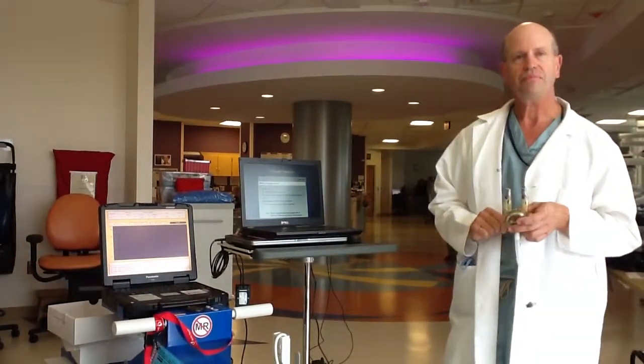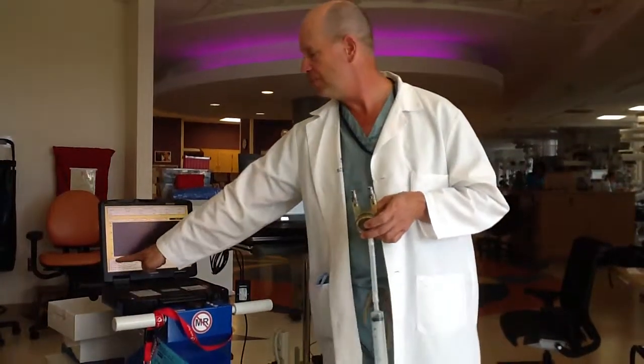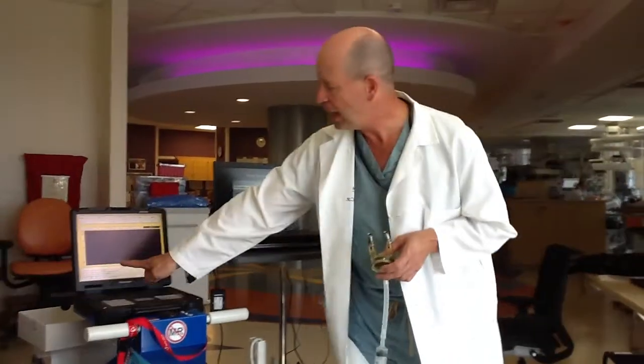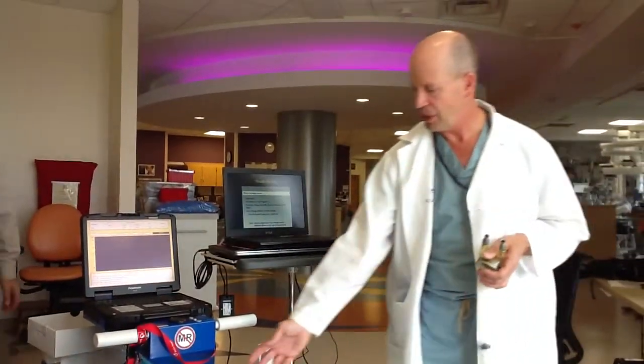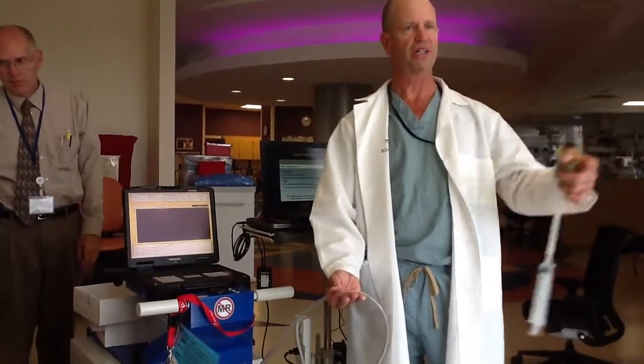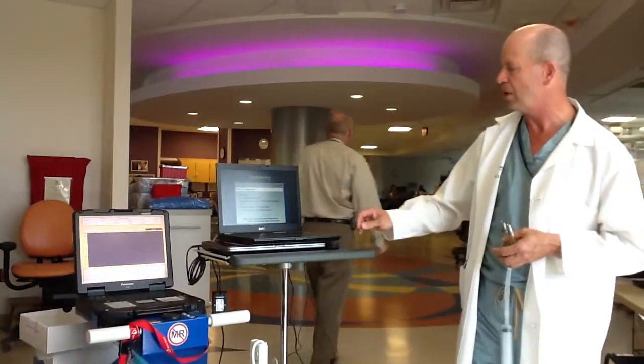Will it record on the comment screen if there was a true alarm? Right — so that would be another place to look. The one I just activated is in red there because that was a critical alarm. The system knows it's not generating enough pressure to generate a systole, so obviously that's a critical alarm.